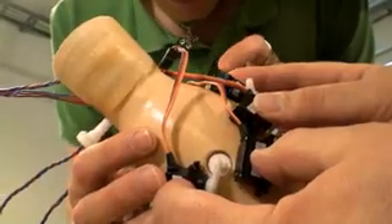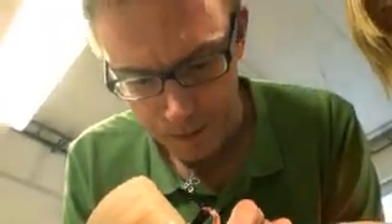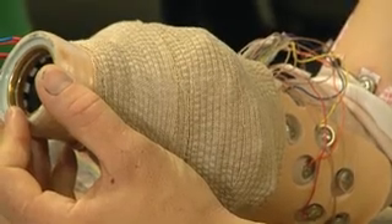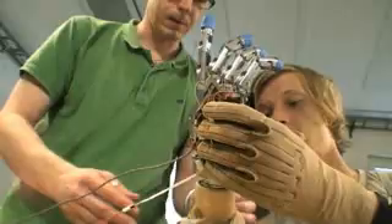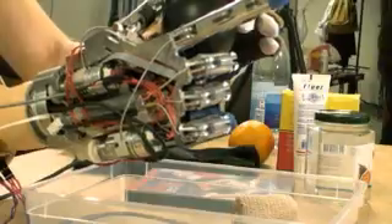But this prototype is only the first step to an even more visionary artificial hand. Most cables and electric motors currently present in the device are far too bulky for industrial use and need to be replaced. What is needed is an implantable processing unit, implantable power source, and implantable trans-skin communication method. Nanotechnology will play a vital part in these further developments.